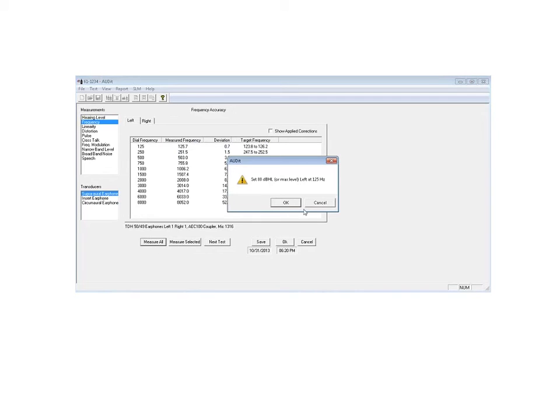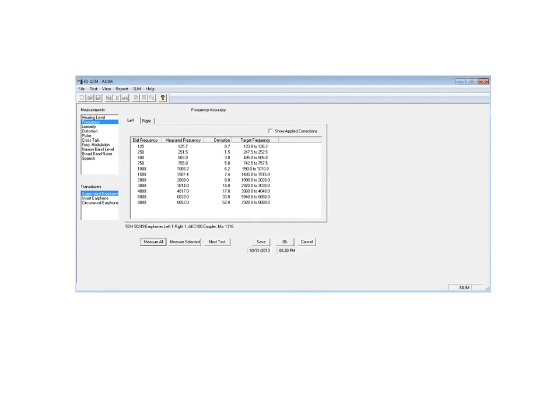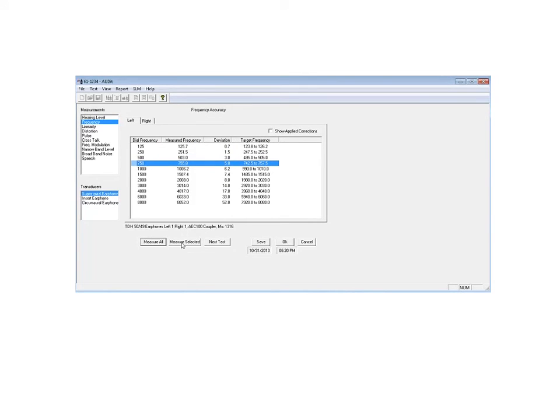At this point, I think we'll bypass that. I think you're starting to see how it's mostly a step and repeat. If one item fails, you can go back and mark that particular item and do a measure selected to home in on that particular problem at that frequency.